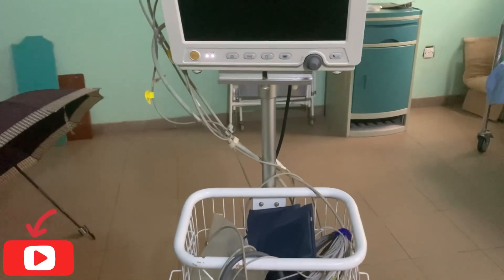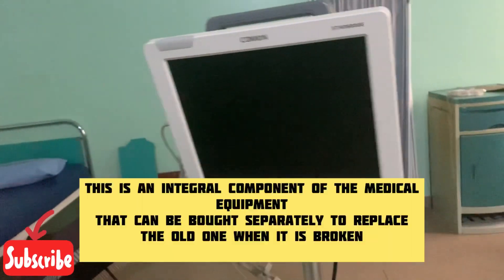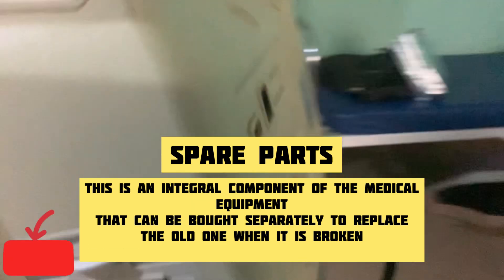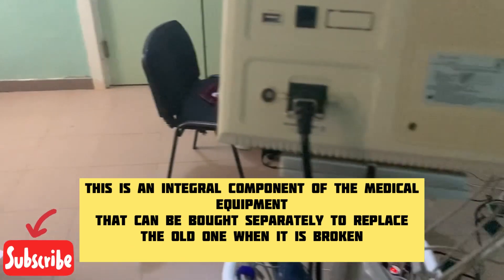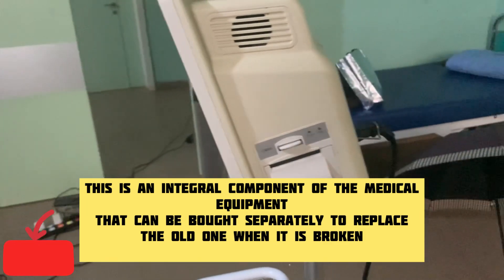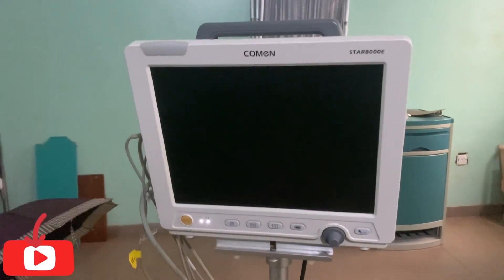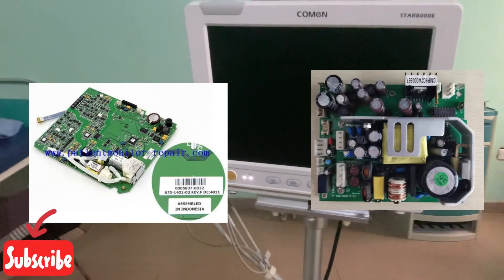Now let's look at spare parts. Spare parts are part of the equipment itself. For example, we have the battery — as you can see here, this is the battery compartment — and then we have the cords and the printer which comes with this type of patient monitor. Circuit boards are also part of the spare parts.